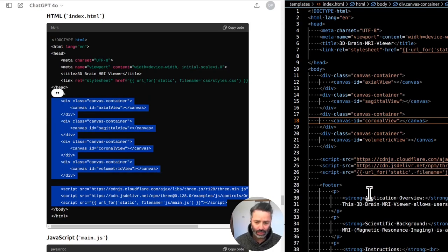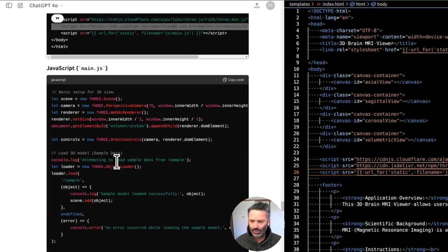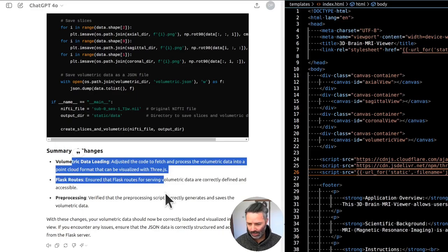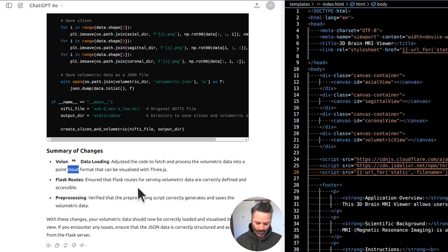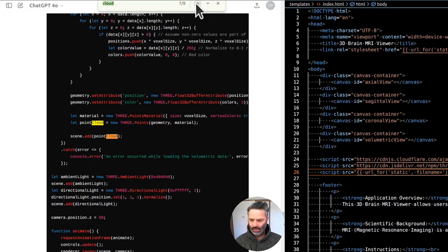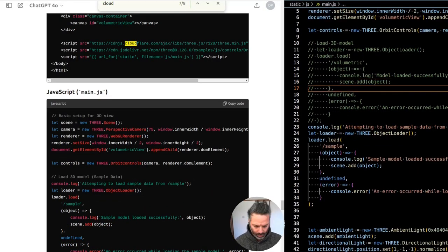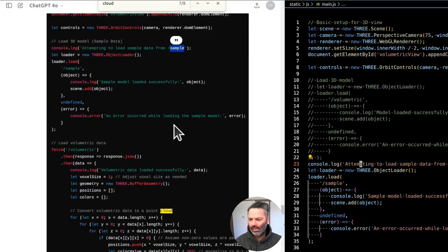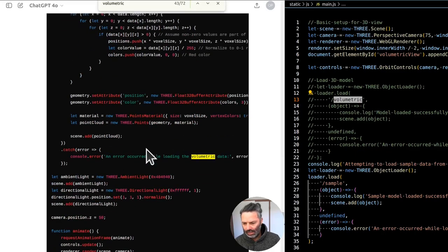Code review: HTML yes, JavaScript yes, Python backend script — preprocessing uses the NIfTI file, saves the slice images as PNG and volumetric data as a JSON file respectively. That's correct. Ensure volumetric data — yes, some changes are suggested. It can process the data and then load it in JavaScript — save as JSON which can be loaded with a fetch call. It's switching to a point cloud format that can be visualized with Three.js.